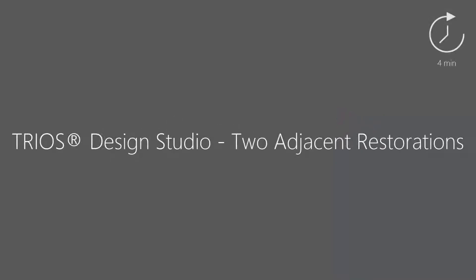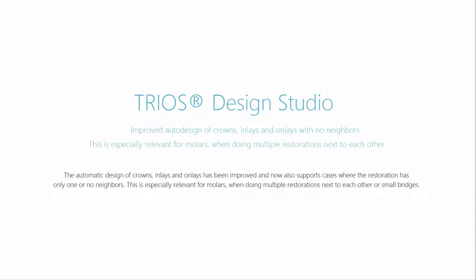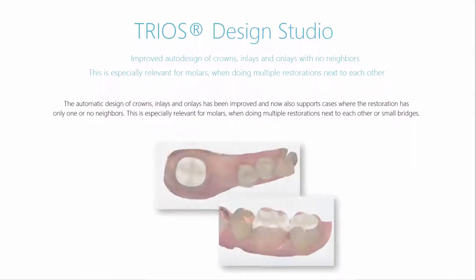In this video you will learn the TRIOS Design Studio workflow for two adjacent restorations. The TRIOS Design solution is a complete digital workflow with fully integrated CAD-CAM modules. The automatic design of crowns, inlays and onlays has been improved and now also supports cases where the restoration has only one or no neighbours, or if two restorations are next to each other in the posterior region. In this video we will show the latter.